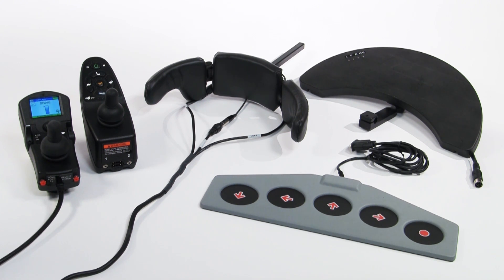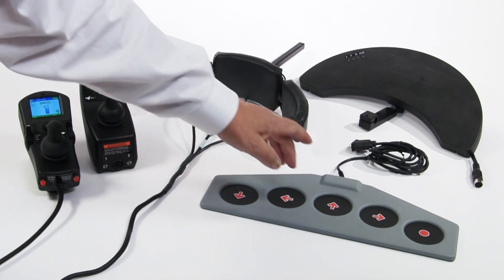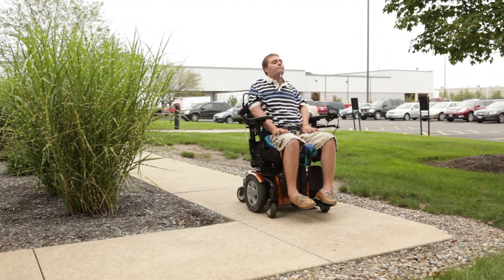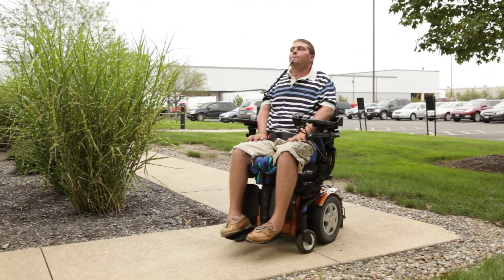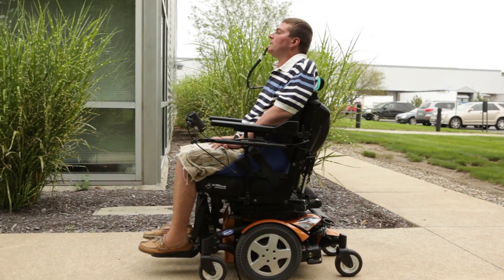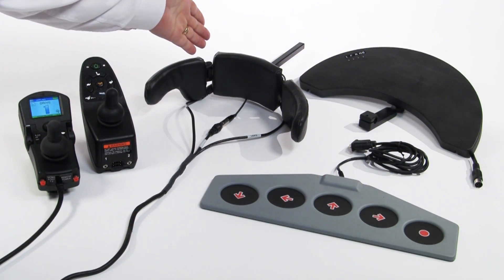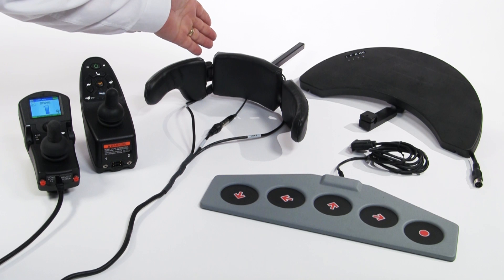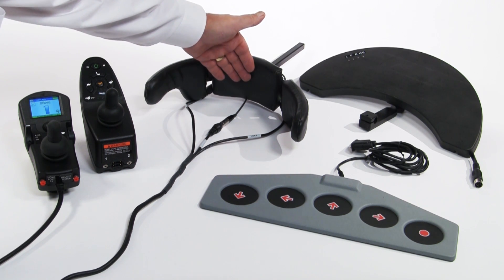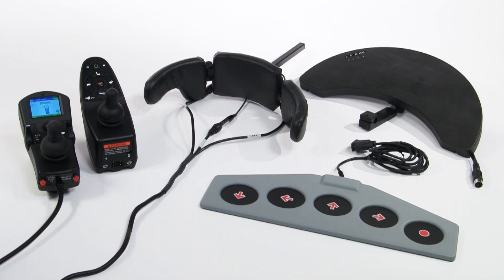Driving directions with a digital control are very discrete and very defined — either forward, left, or right. Two switches, such as forward and right, can be pressed at the same time to drive off in a diagonal direction. This is very helpful when using driver controls such as an ASL switch head array, combining the forward and right switches to drive diagonally.